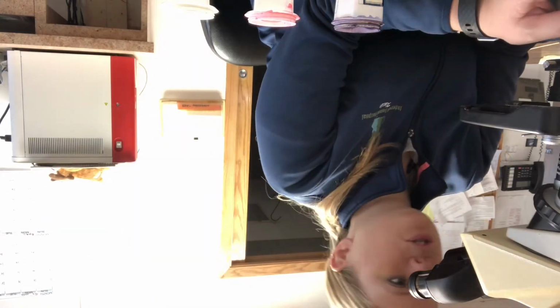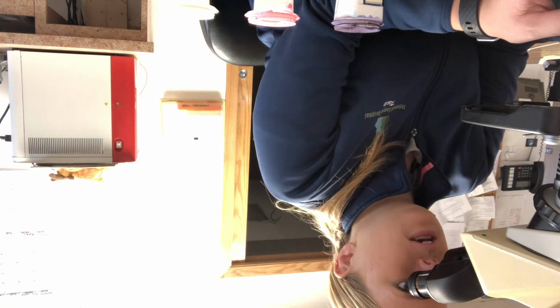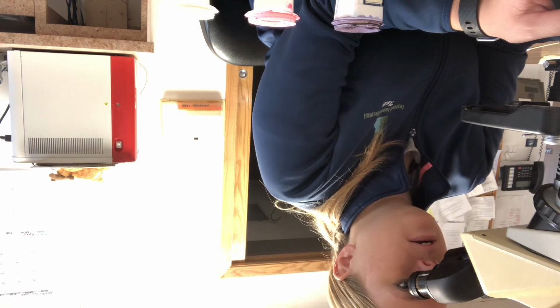And then into the purple. And then I'm going to rinse this with water, and it will be ready to look under the microscope with our cover slip. Underneath the microscope, now you are looking to ID any bacteria, any yeast cells, and just doing a quick scan through here.